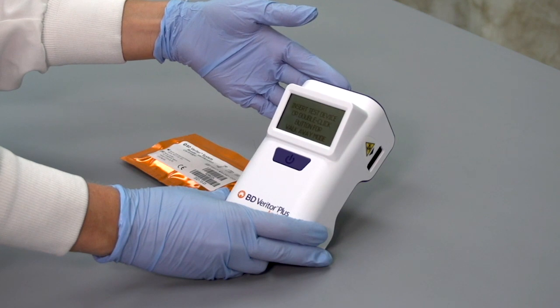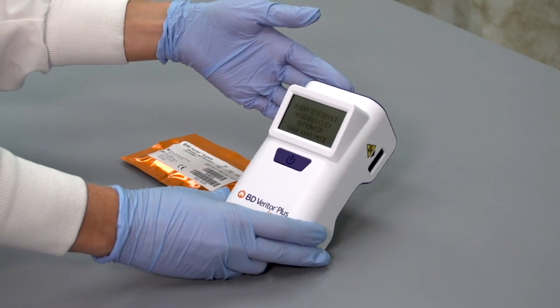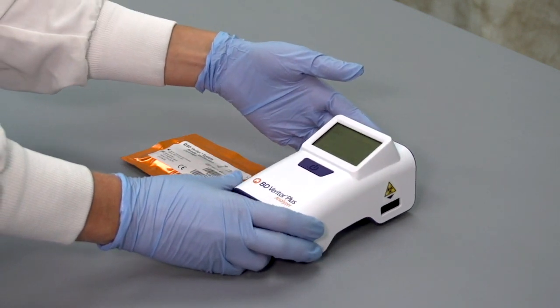The analyzer then goes through a brief self-test routine. The software version will appear on the LCD display and then the self-test result will be displayed.